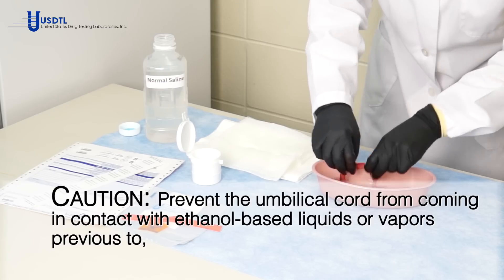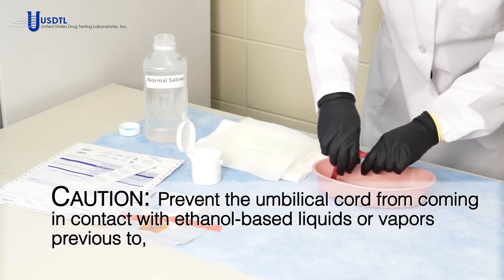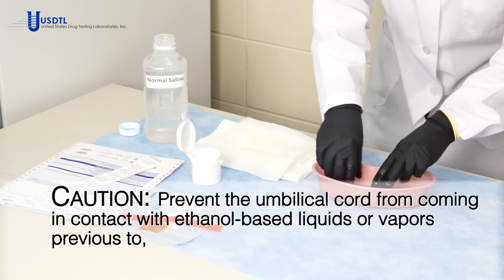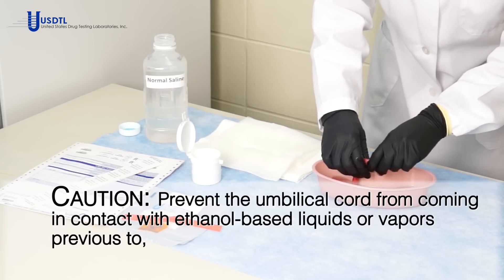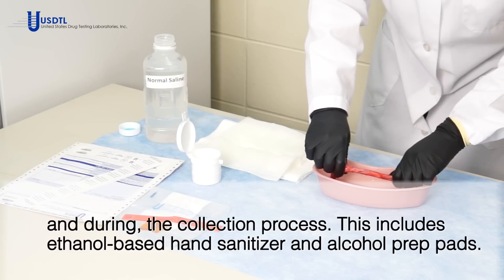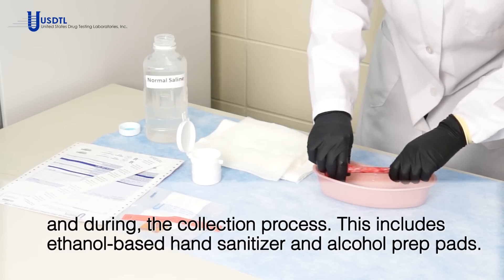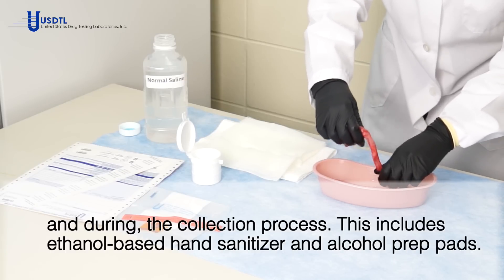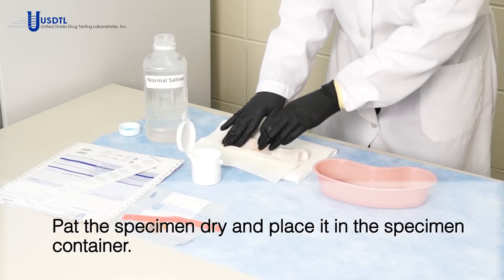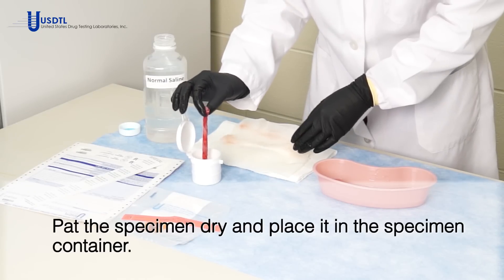Caution! Prevent the umbilical cord from coming in contact with ethanol-based liquids or vapors previous to and during the collection process. This includes ethanol-based hand sanitizer and alcohol prep pads. Pat the specimen dry and place it in the specimen container.